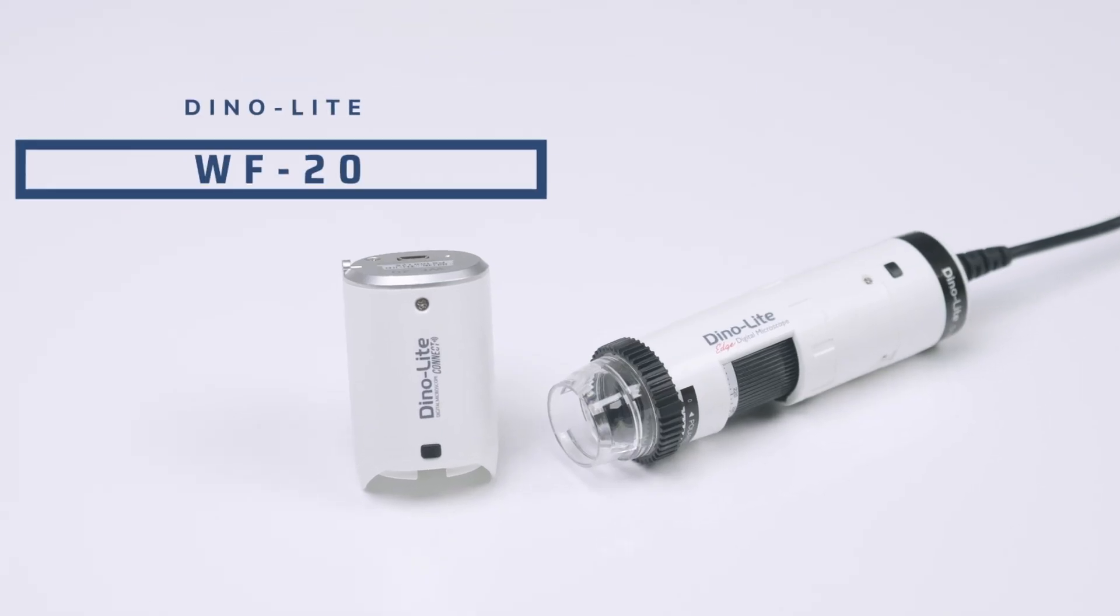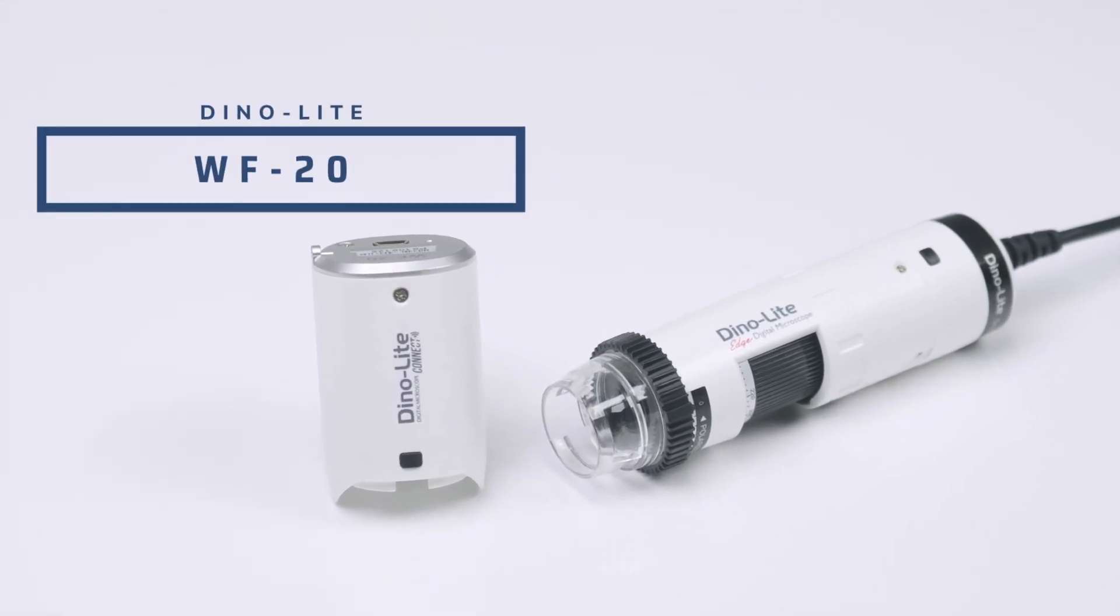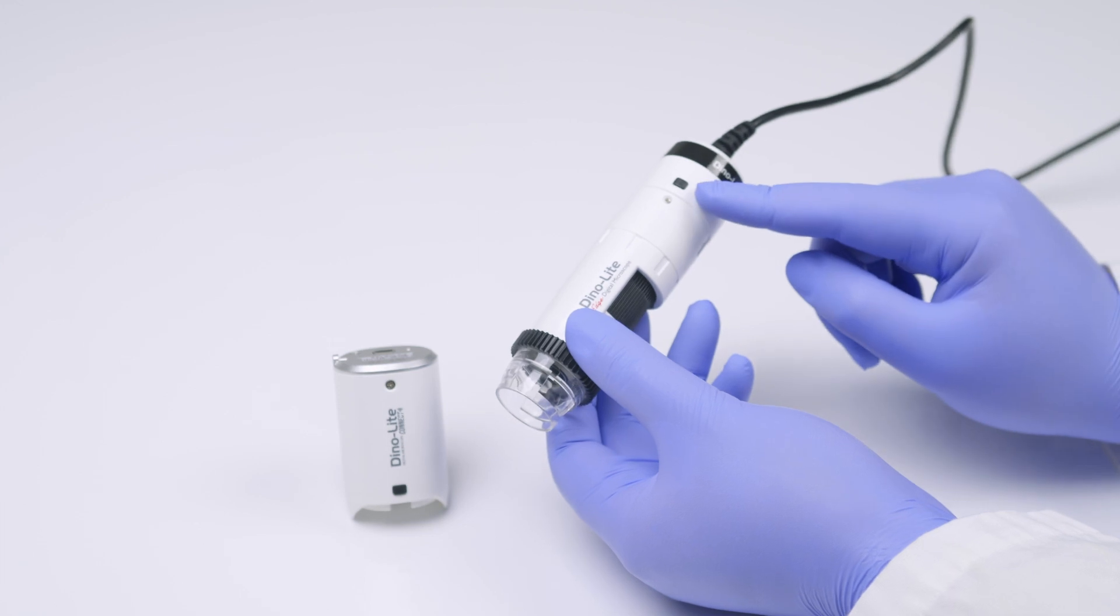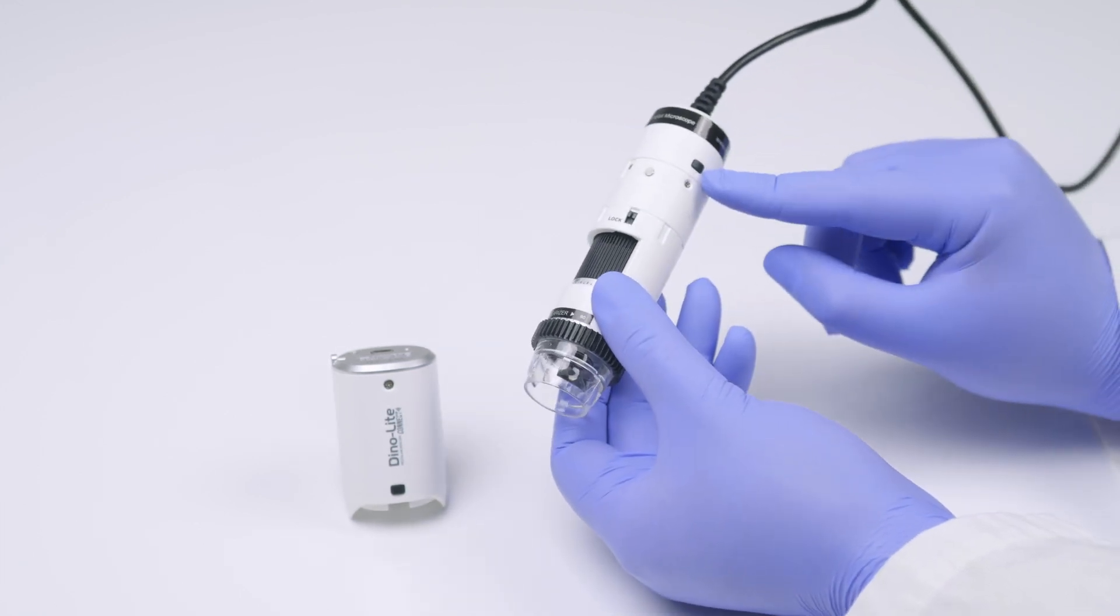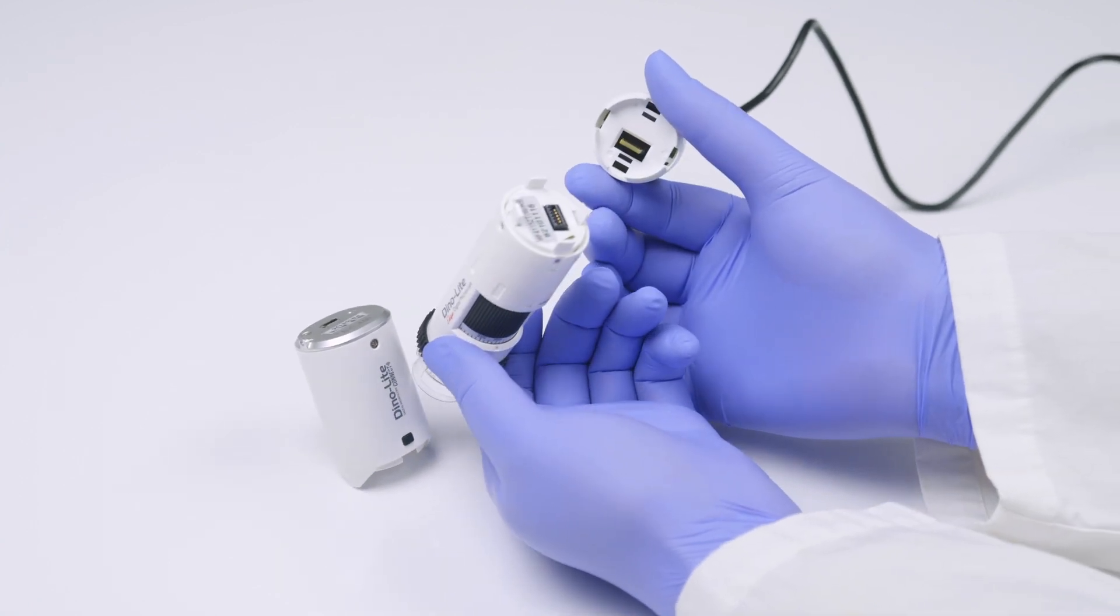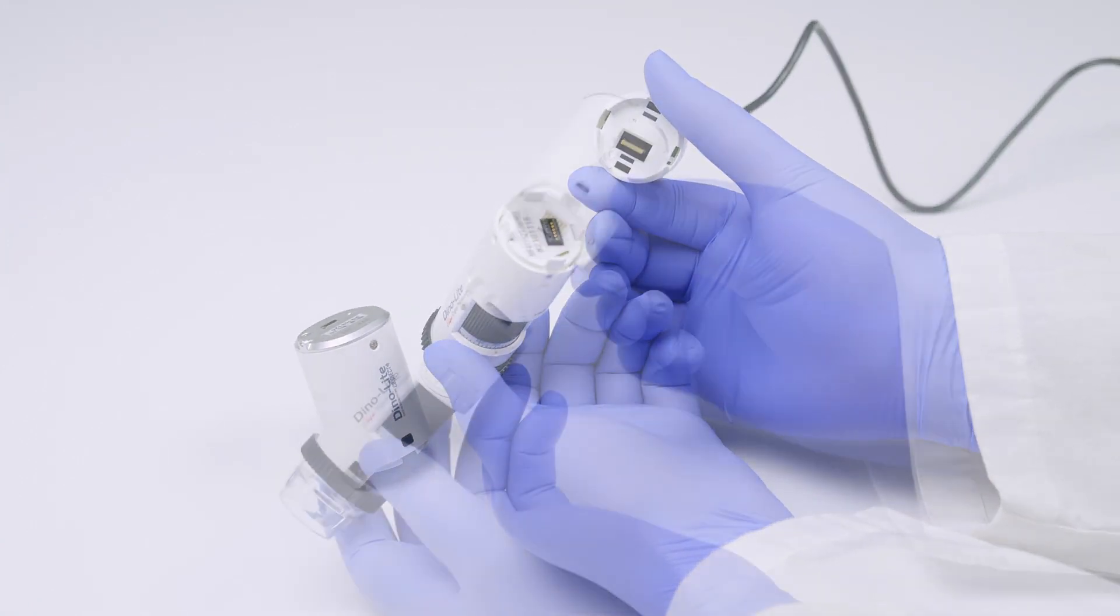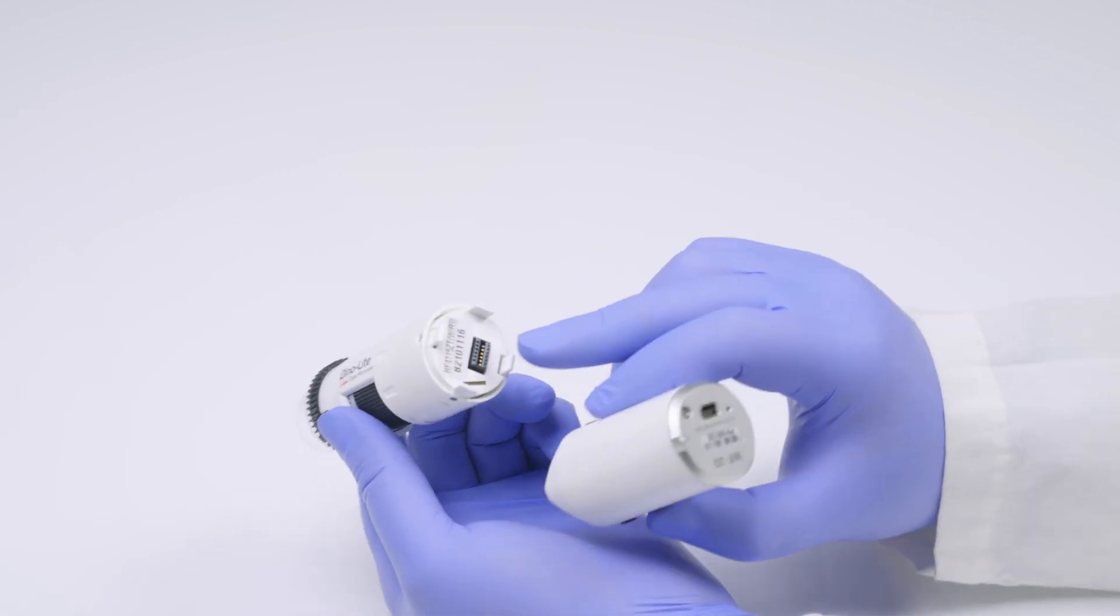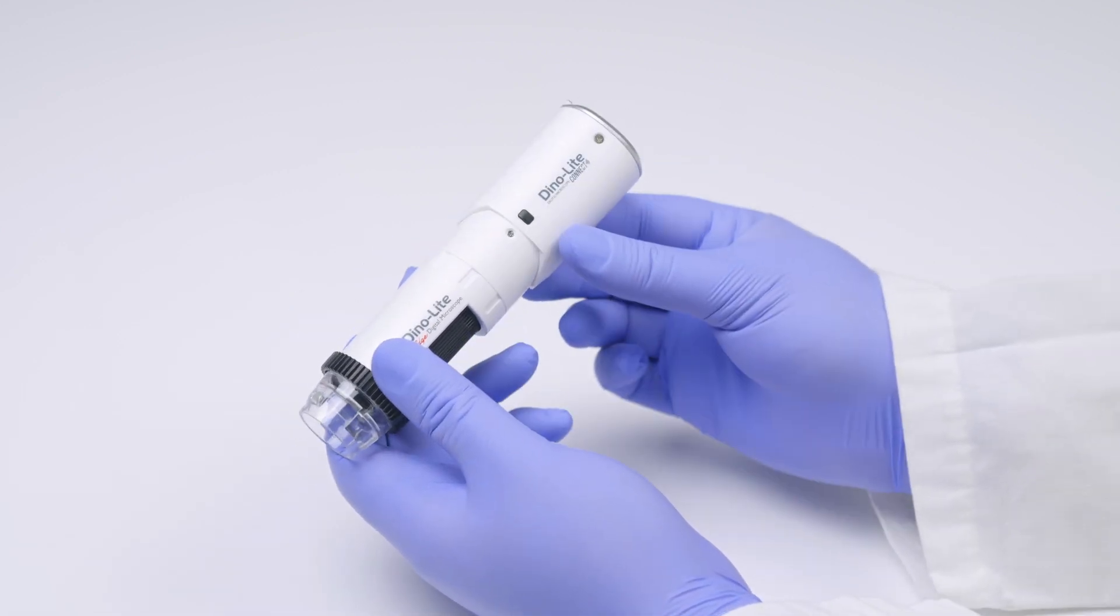For a wireless connection, the WF20 Wi-Fi adapter is sold separately. To connect the WF20 adapter, press and squeeze these two black buttons simultaneously and then firmly detach the USB cable dongle from the rest of the dermascope body. Next, line up the inserts and attach the WF20 battery. You should hear a clicking sound once it's secure.